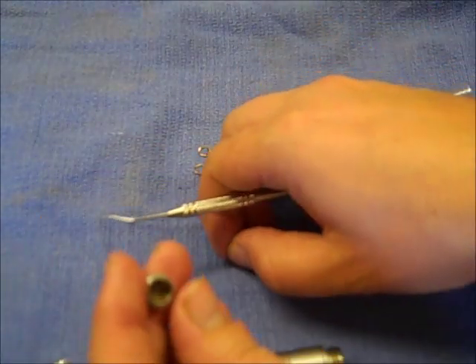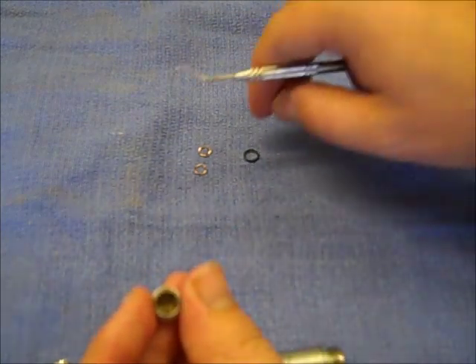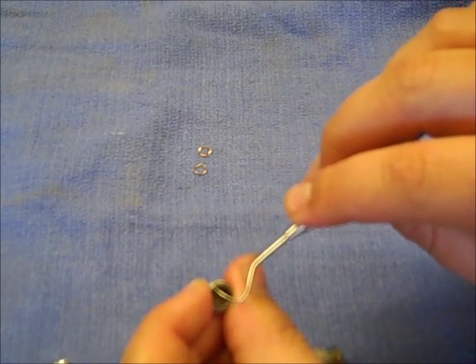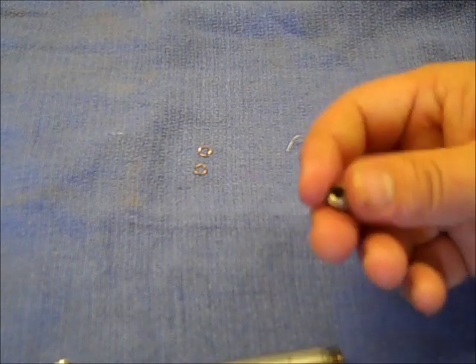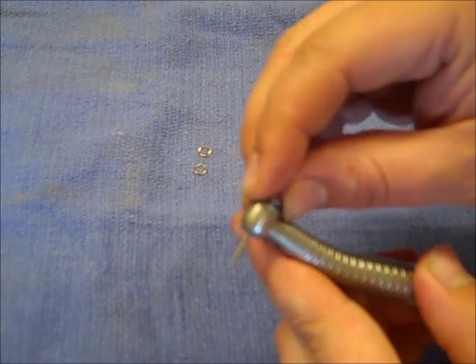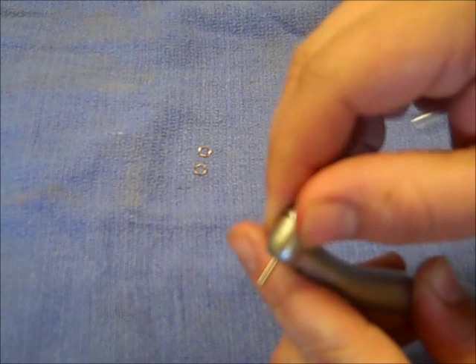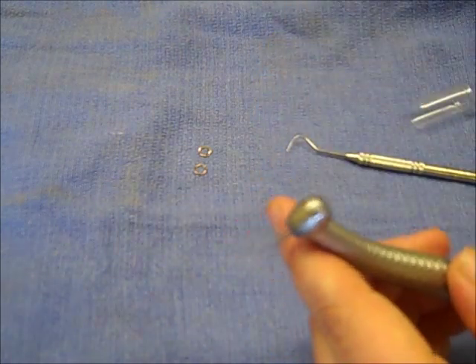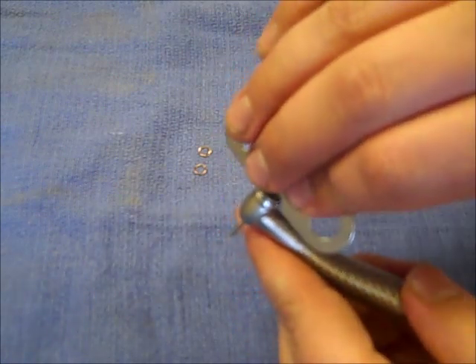For the end cap, make sure it's cleaned out and the spring washer is nice and clean. Put the spring washer in first, then put the O-ring in to capture it, and make sure it's all centered up in there. Then hold the end cap, put it over that rear bearing, and be careful not to cross-thread it as you start it. Go ahead and snug it down, then use a wrench to tighten the end cap up.